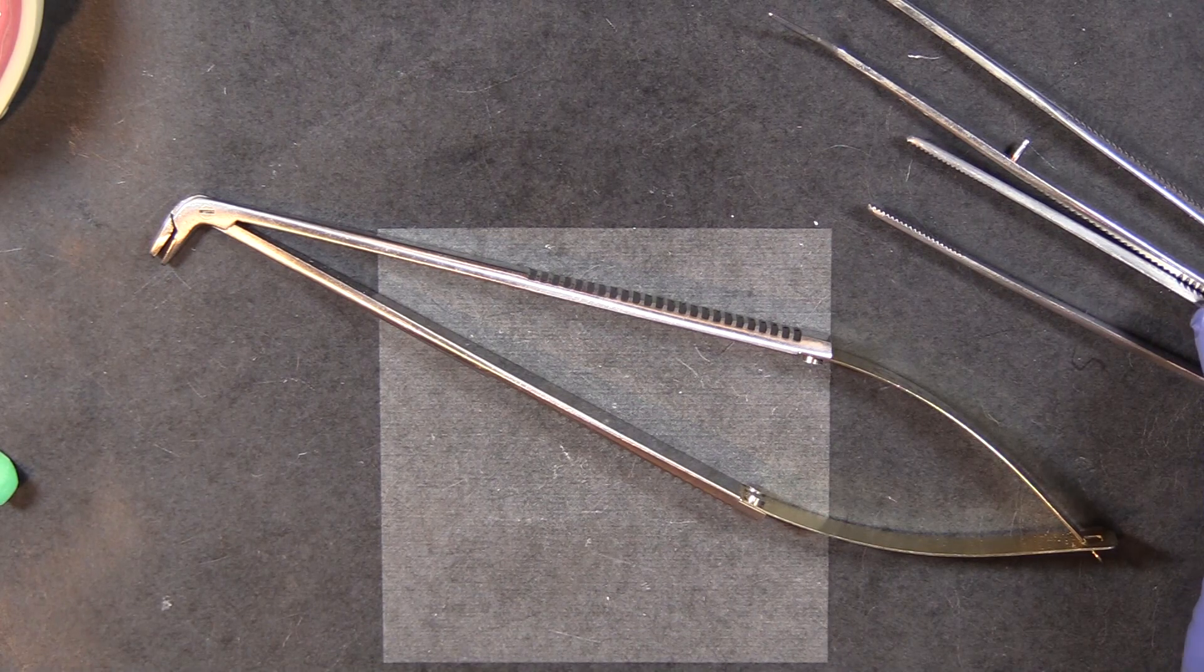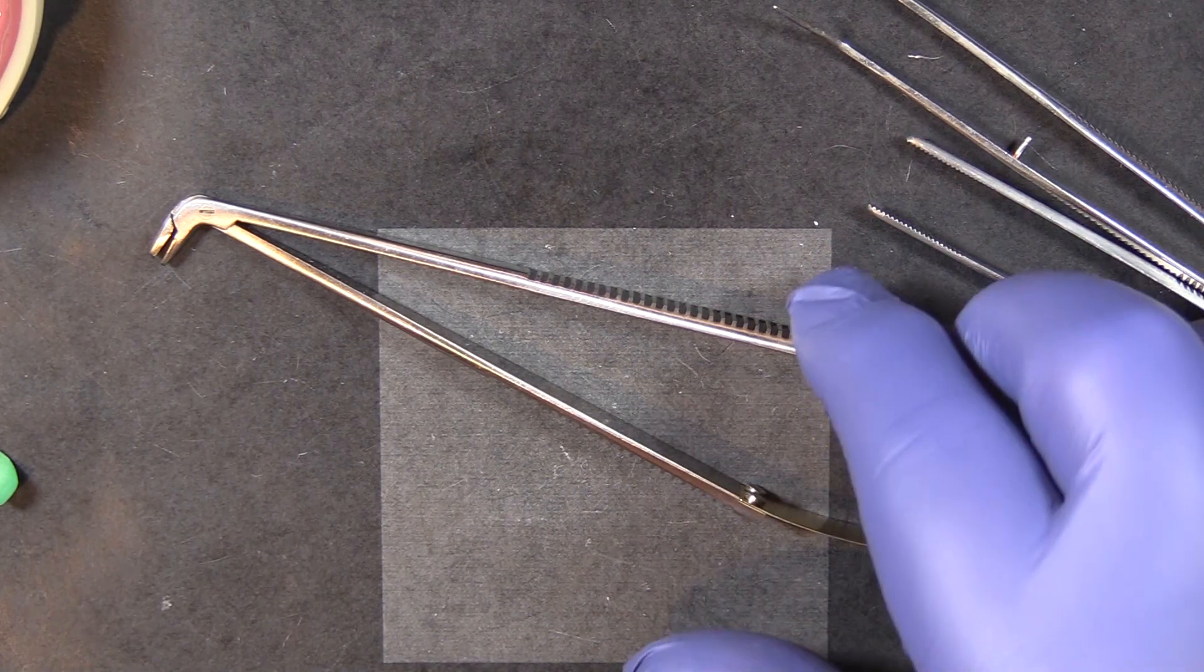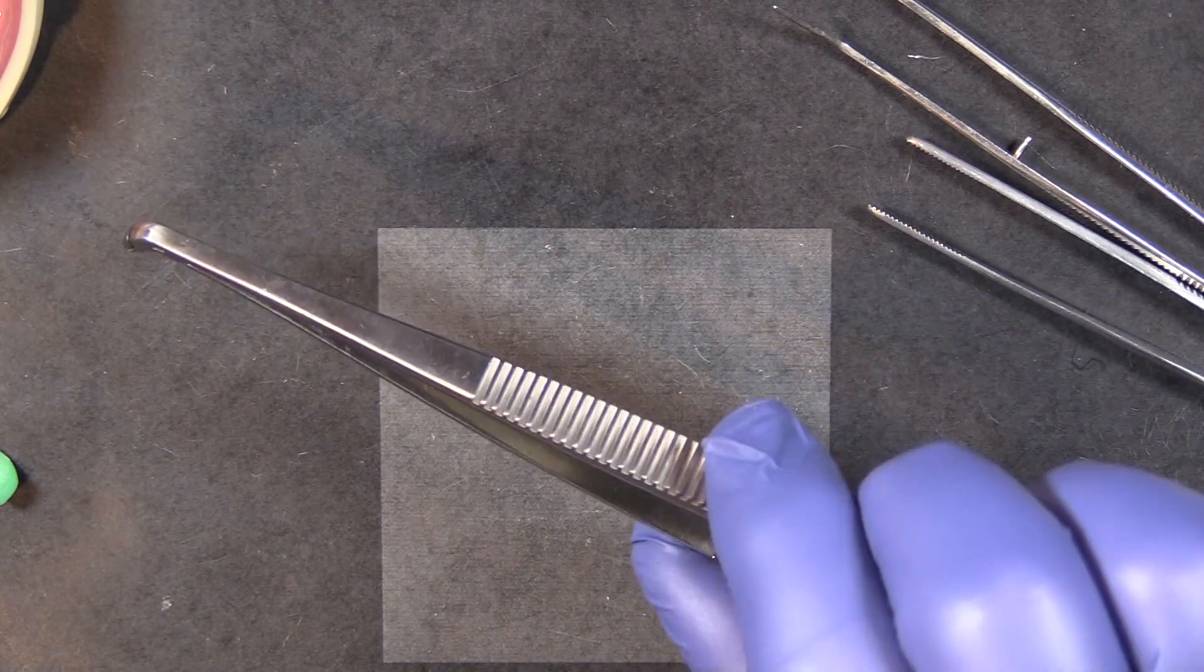Hi everyone, this is Kevin with Garrison Dental Solutions and I wanted to show you our band placement and removal forceps today.